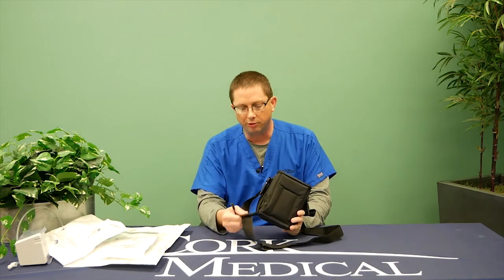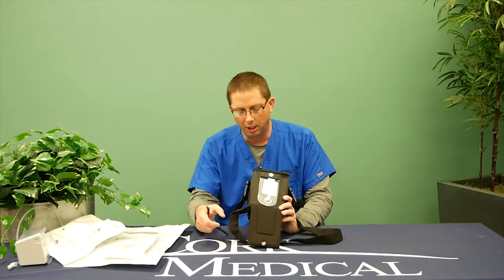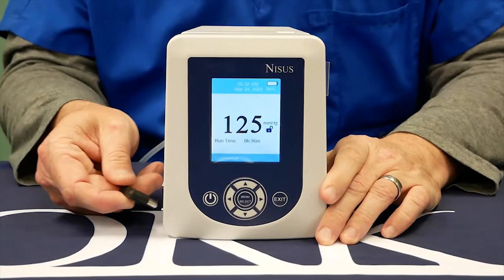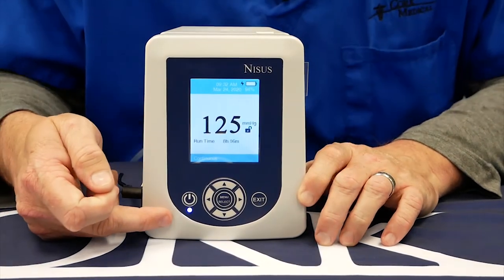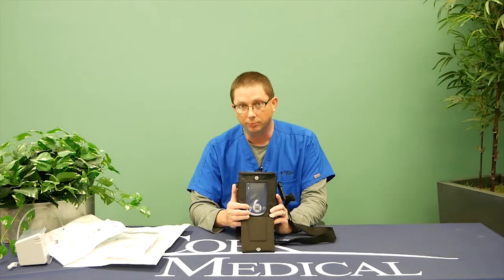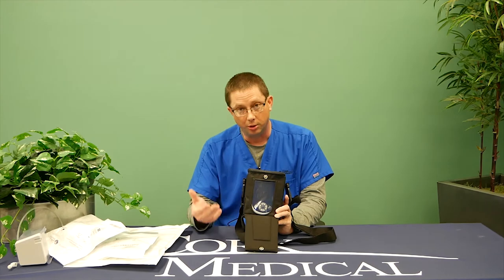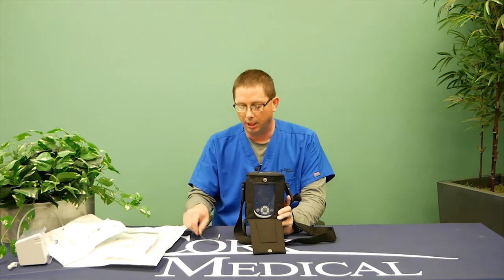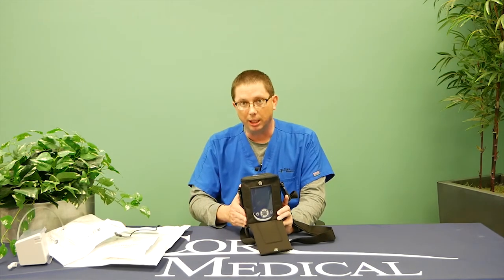On your pump, there's a flap on the side. You pull down the flap on the front and plug your charger into the side. You'll notice a blue light illuminating on the pump indicating it is charging. If you need to get up, go to the store, or walk around, you can just unplug it and set the charger to the side. When you come back and sit down or lie in bed, you can charge the pump again.